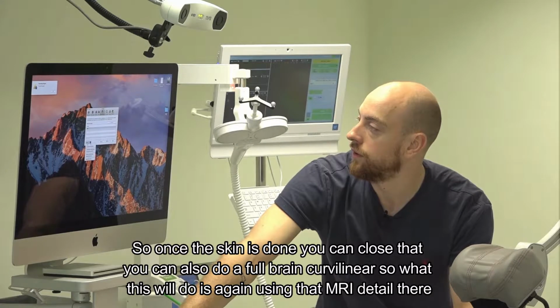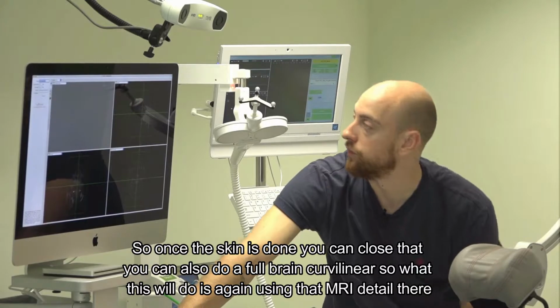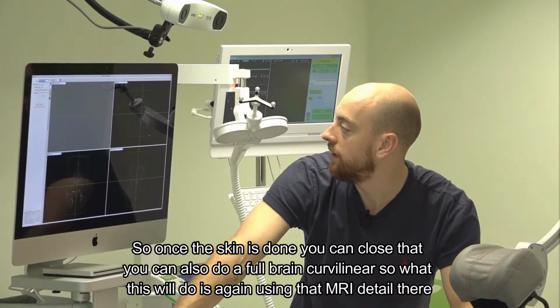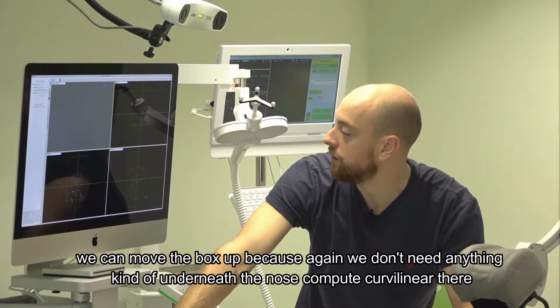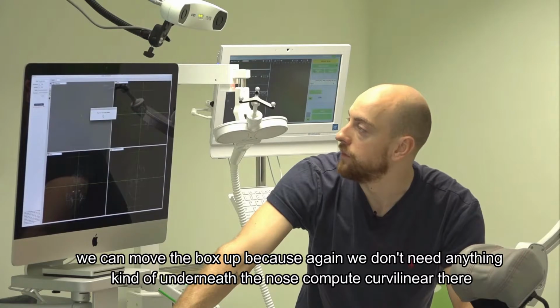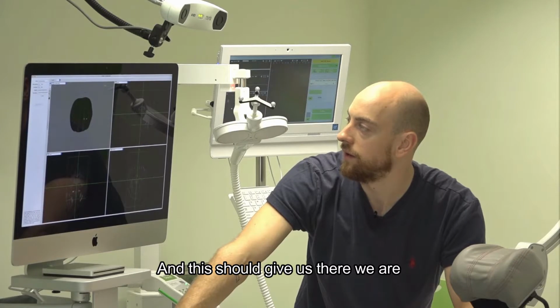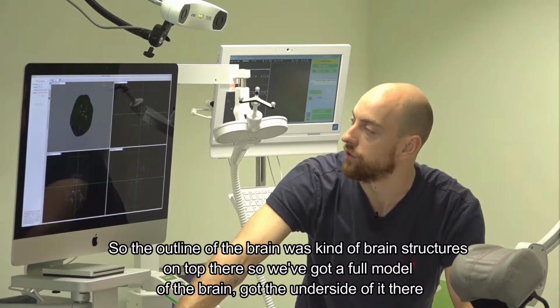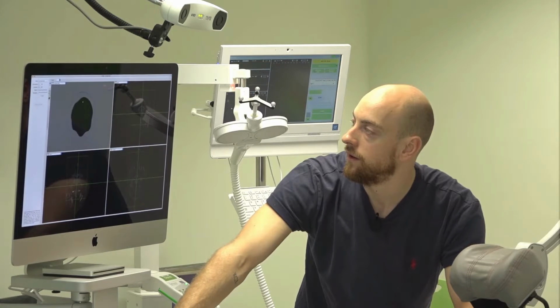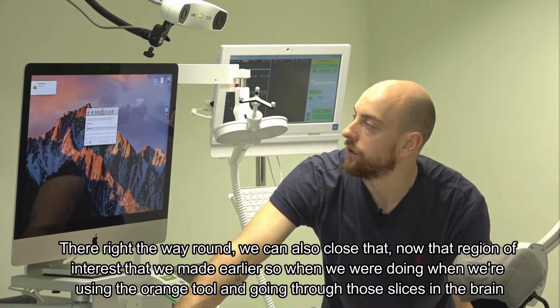You can also do a full brain curvilinear. What this will do, again using that MRI detail, is let us move the box up, because we don't need anything underneath the nose. Compute curvilinear there. And this should give us, there we are, the outline of the brain with brain structures on top. So we've got a full model of the brain, with the underside of it right the way around. We can also close that.